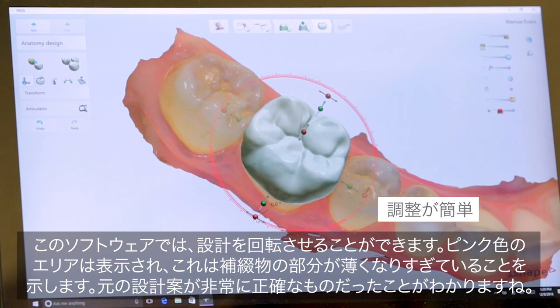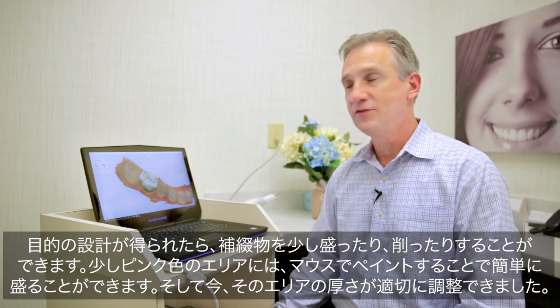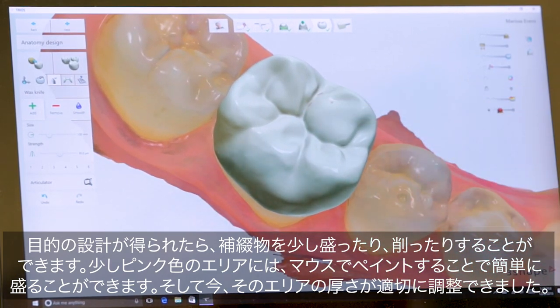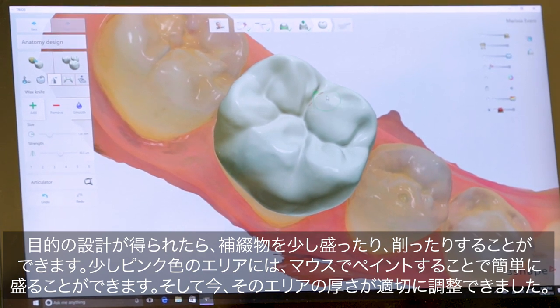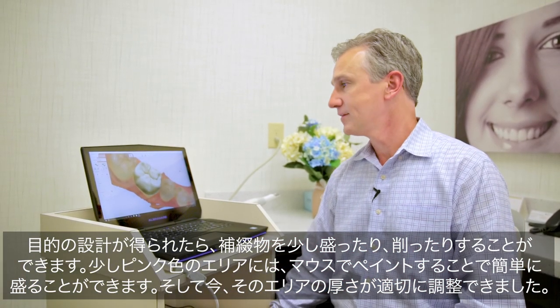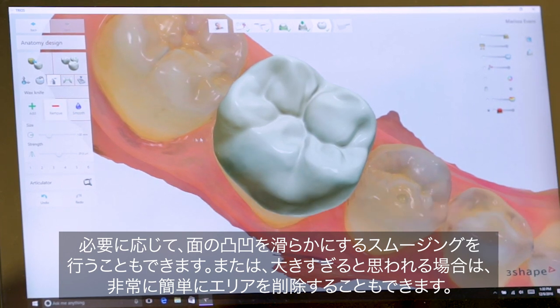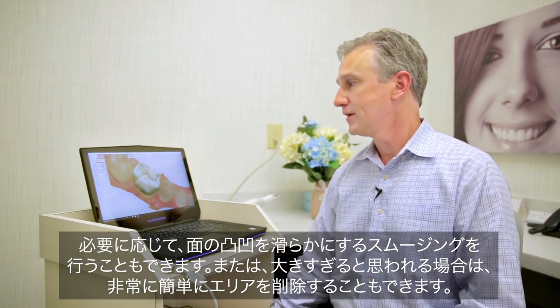The original design was very, very close. Once you confirm that this is the design that you want, you can certainly add to or take away from the restoration. The areas that are slightly pink, I can go in and easily add to and paint over. Now those areas are nice thickness. We can also smooth areas — if you want less anatomy, you can smooth those areas. You can also remove areas if you think you have too much bulk; it's very easy to remove in the software.